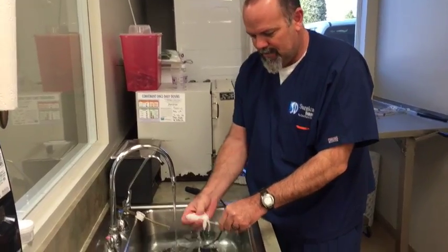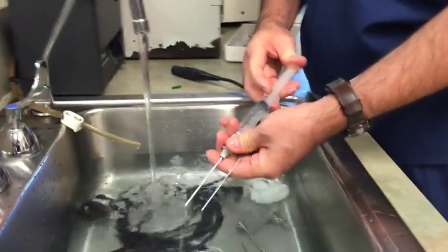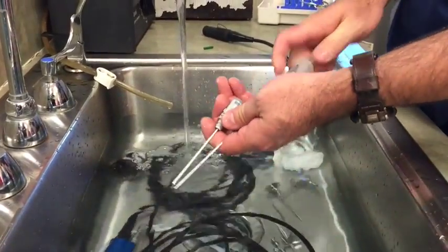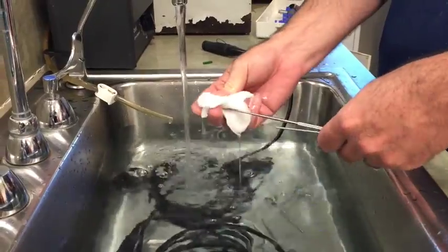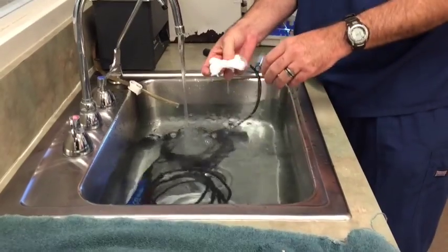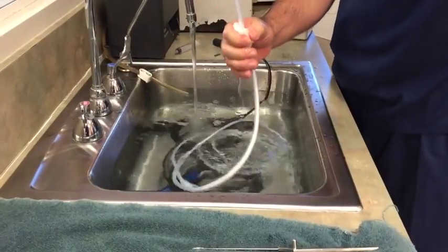This is the shaver. You can get little bits of tissue in there from being in surgery. Stryker does not condone in any way, shape, or form the reusing of shaver blades. These are fine — a lap sponge. A kitchen sponge is going to be too stiff. Everything is submerged.